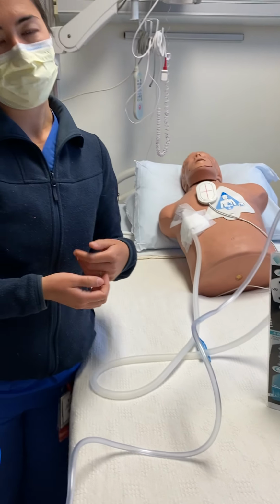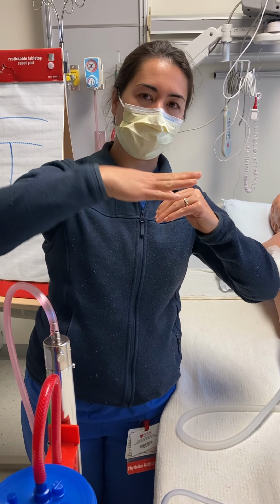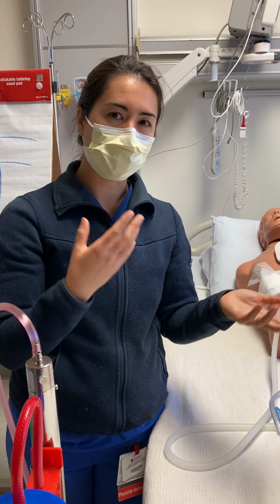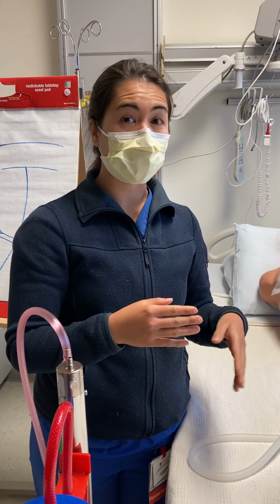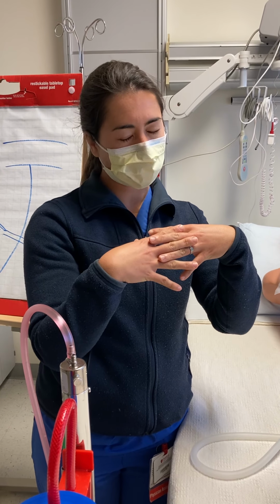So what's the difference between tidaling and an air leak? If you have tidaling, you may see the fluid undulate and move, but an air leak is when you actually see a bubble come up and break the surface. So that's what you're looking for when you describe an actual air leak. Now, if you have an air leak that's just expiratory, we could expect that after a lung resection because the lung can take time to heal even though we use staples. So once that heals, the air leak will stop.